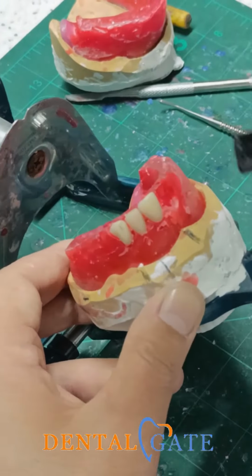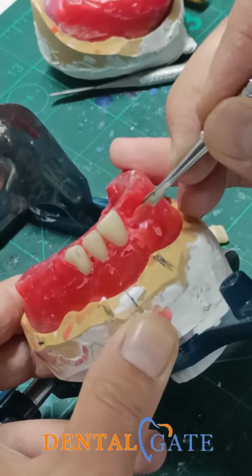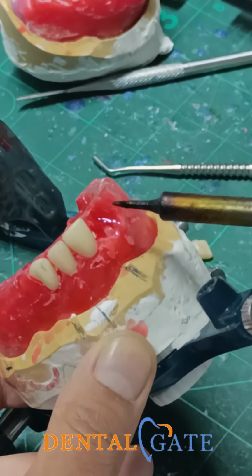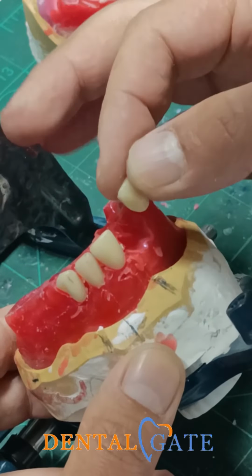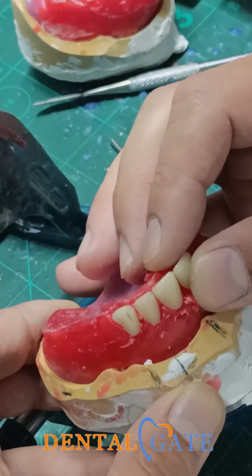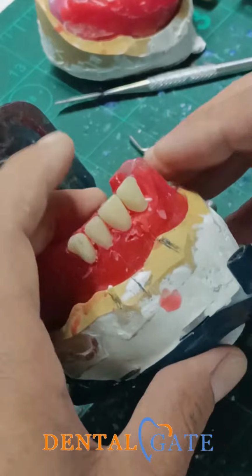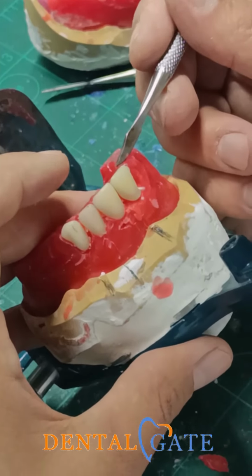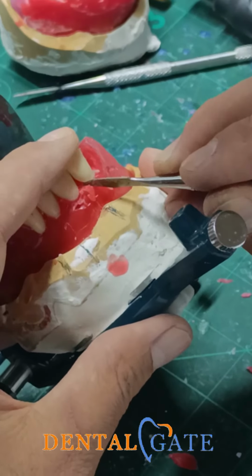So if I have a narrow space, make another one and make a mounting here, and use the wax to sustain your teeth from behind, from the lingual aspect. Don't remove all the wax, because this wax will guide you to a good result, because we already had a curve here. A central incisor should exceed 1 millimeter from the wax, 0.5, sorry.